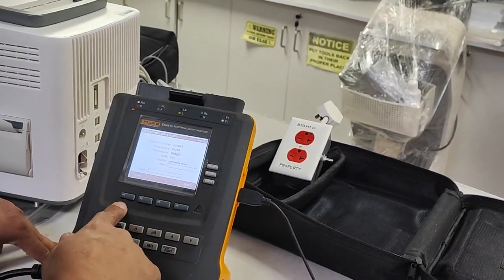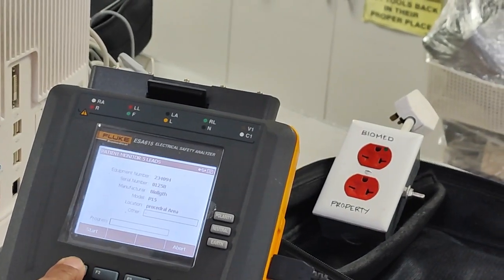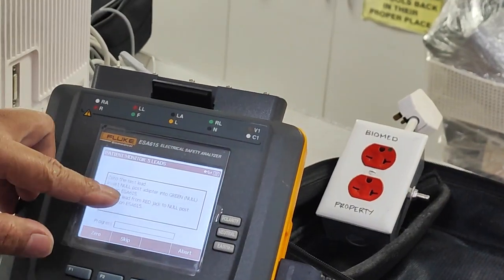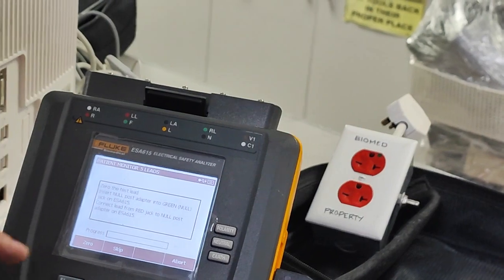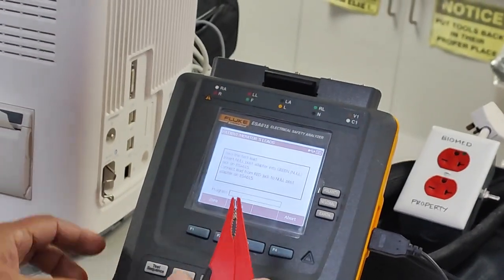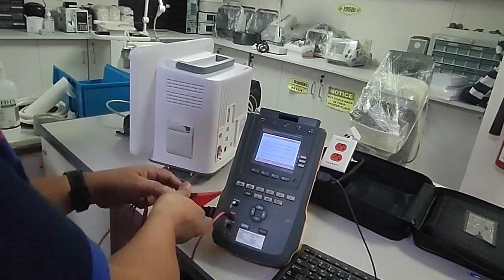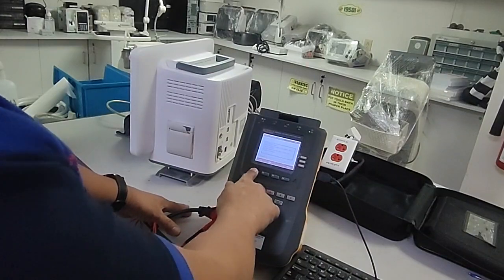After entering all details, press Start. Once you start, it will ask you to zero the equipment — you'll see 'Zero the test lead.' Insert the null post adapter into the green null port. This red connector is for grounding, connect it to the null. We don't want to connect to the monitor yet — zero first, then make it zero.